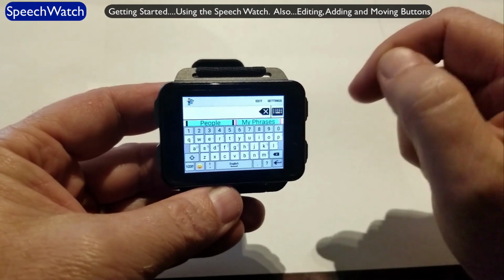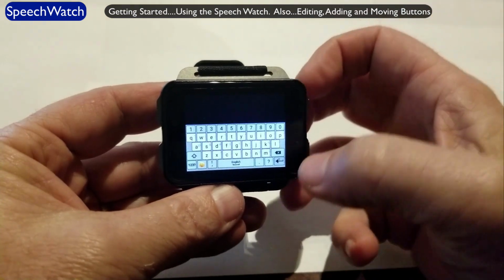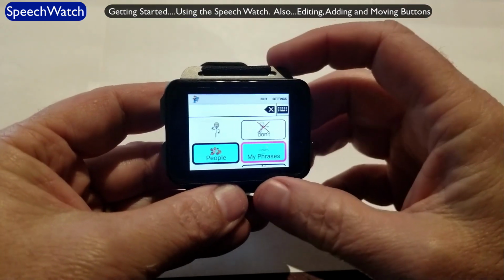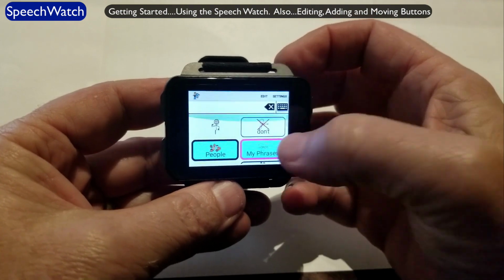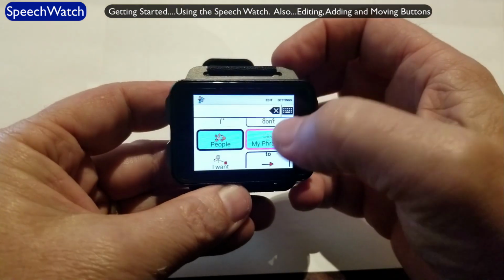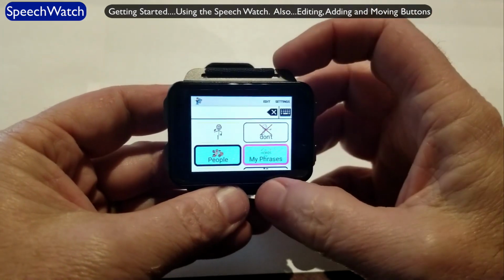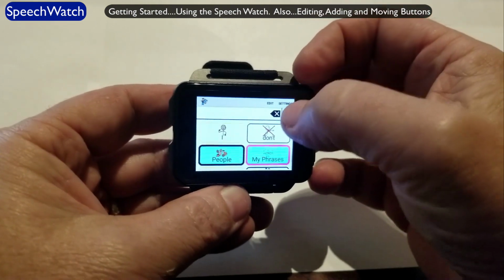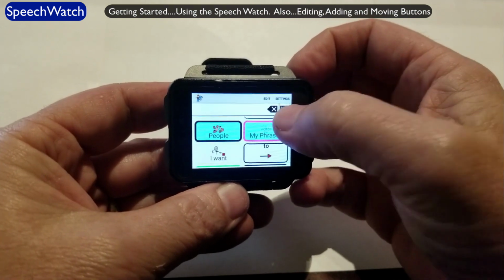Again, keep in mind that this Talk tablet on the SpeechWatch does not have to have symbols on the buttons. You could have just text on the buttons if you prefer, but I'm just showing this as a standard setup for now. Okay, so then the bottom three-quarters of the screen has all of our buttons. I can remove the sentence bar or the message bar if I want as well. I can simply go into settings, default settings, and turn it off. But let me give you an example of it speaking here.